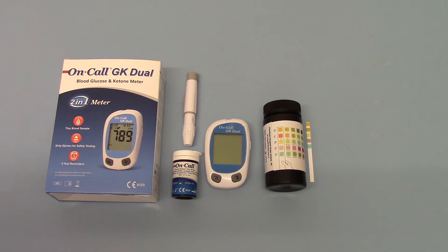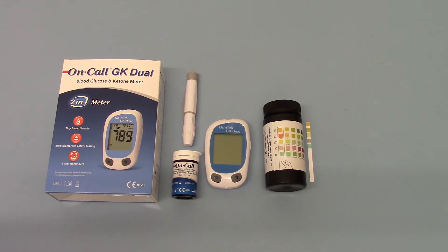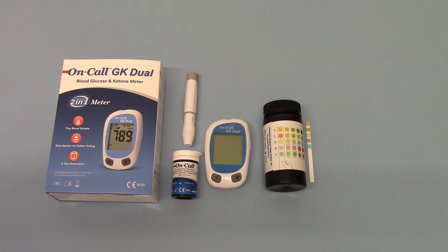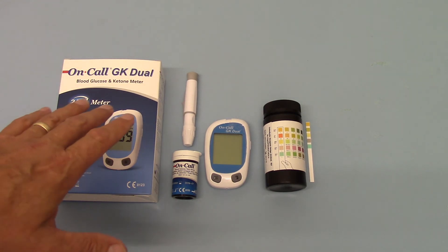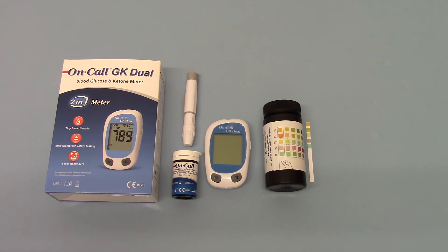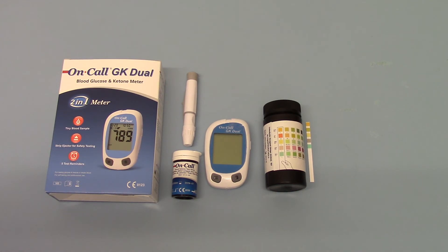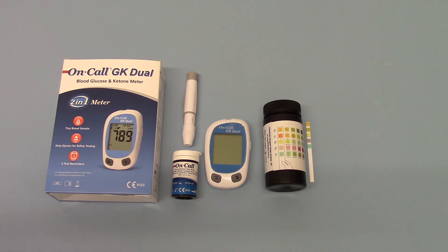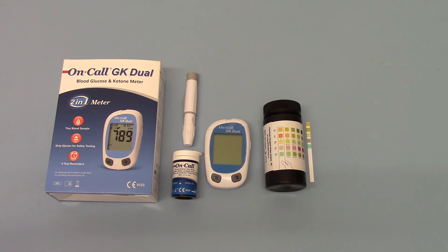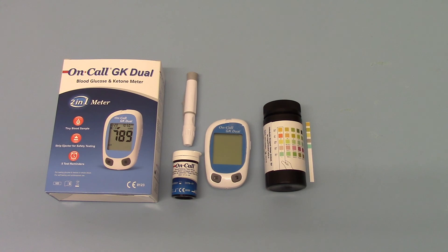So far better to stick with the urine ketones for dietary use. If you're diabetic and need to know the level of ketones so you can seriously look at your healthcare and insulin requirements, then obviously the peak blood levels you're reaching are far more relevant and important. That's where the dual GK meters that do both glucose levels and ketone levels using different test strips will be of critical importance. This is an ideal blood glucose and ketone combined meter for diabetic patients. Both of these kits are available through the ValueMed website.